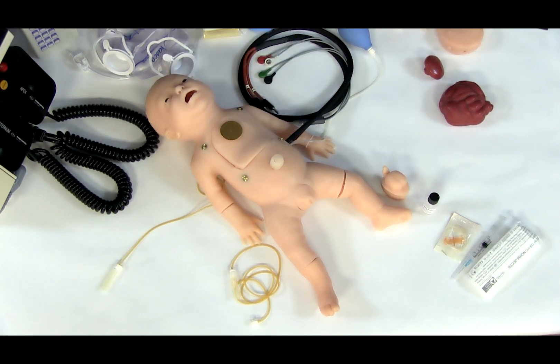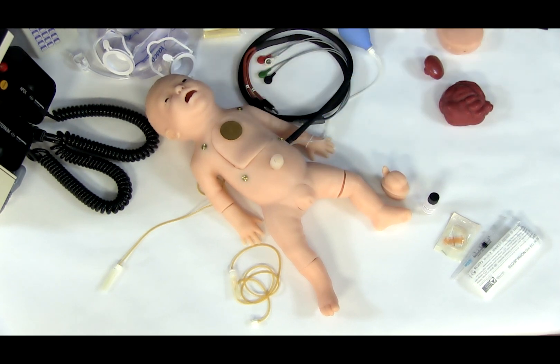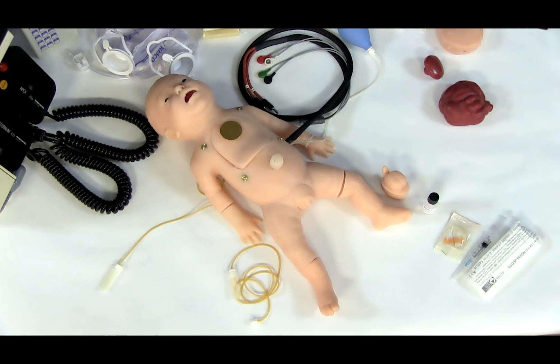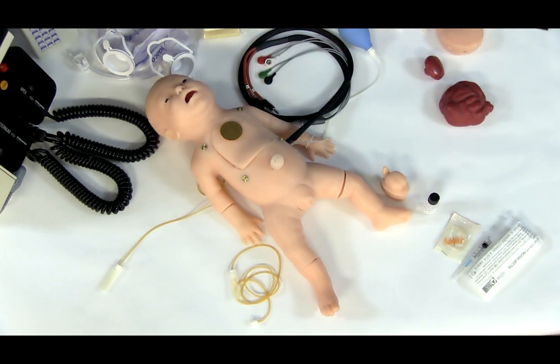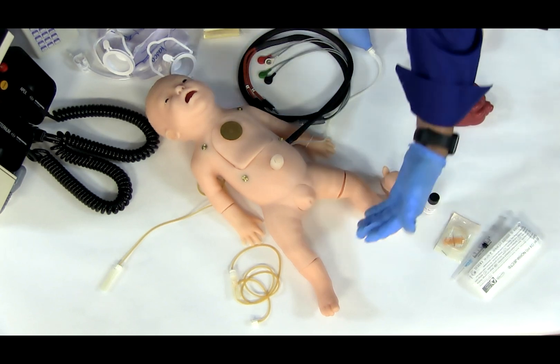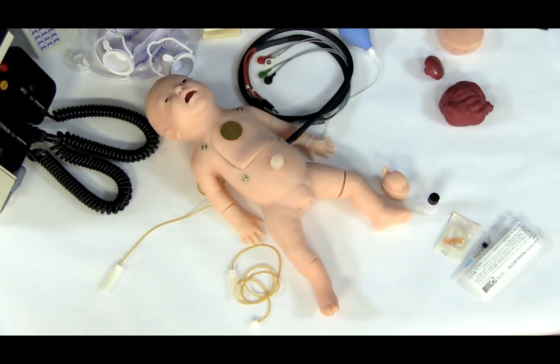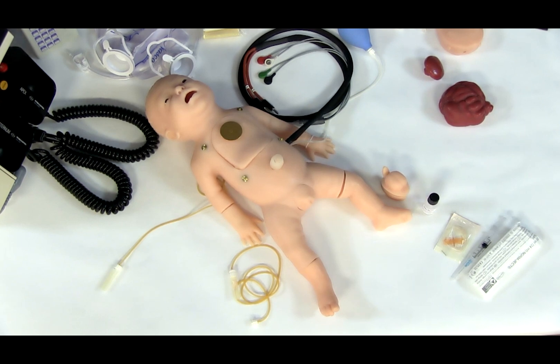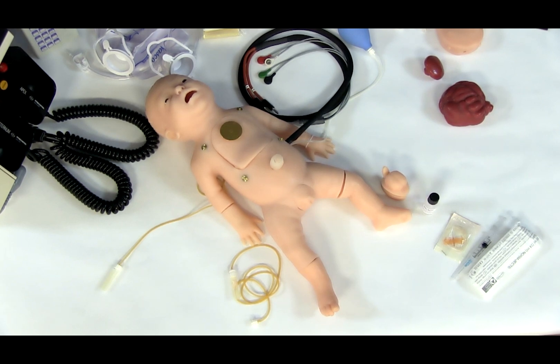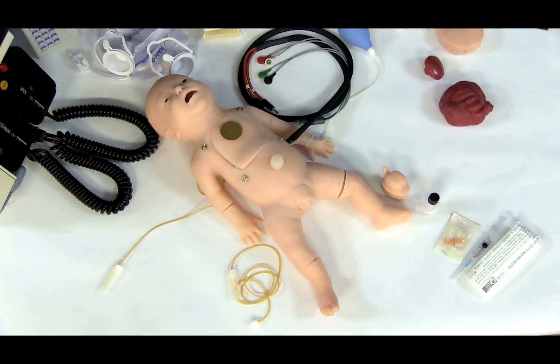Additional capabilities include fluid infusion, urinary catheterization, administering rectal medications, performing rectal temperature checks, intraosseous leg infusion, pulse features, and incubation heat compatibility.